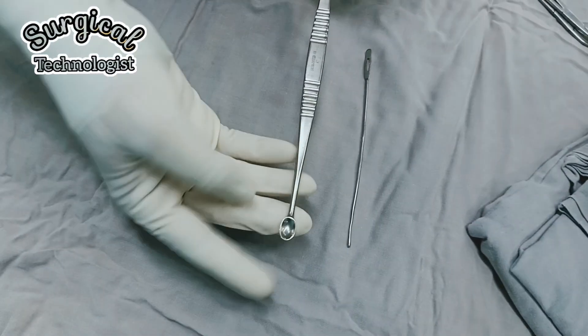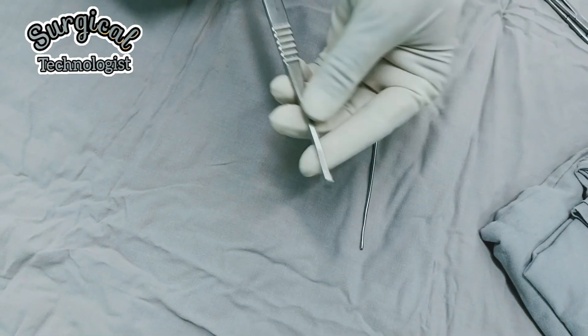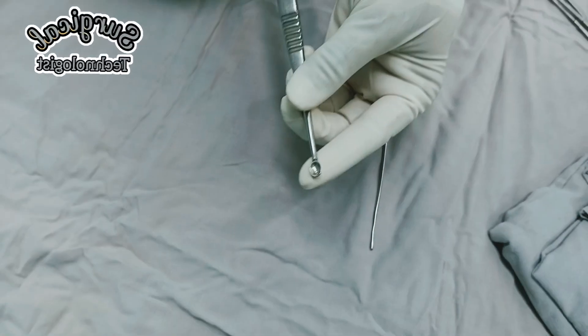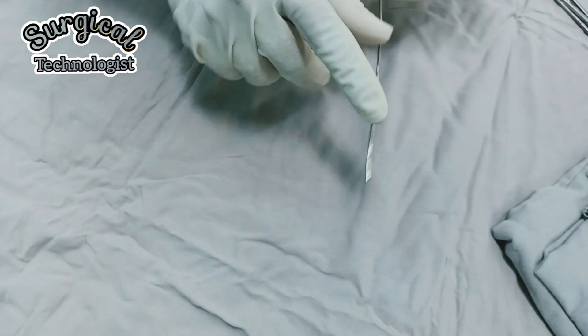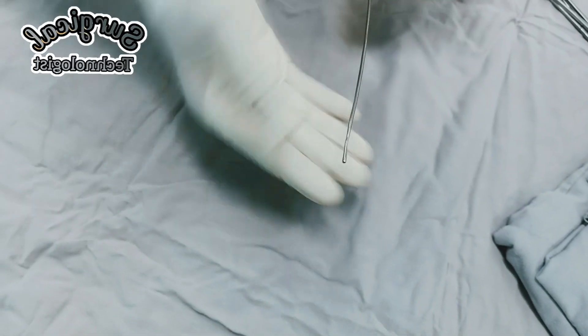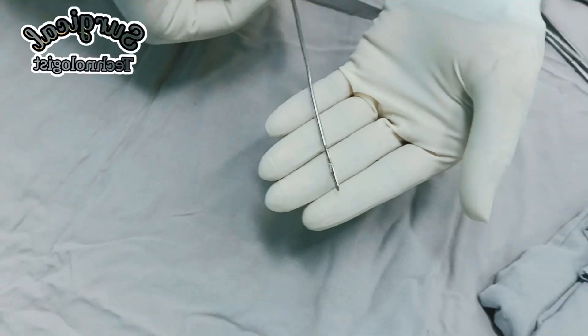This is a double-ended curette, also known as Volkmann curette, used for scraping or removing debris. This is a probe with eye, used to find any fistula or sinus.